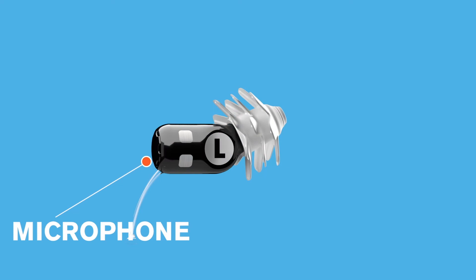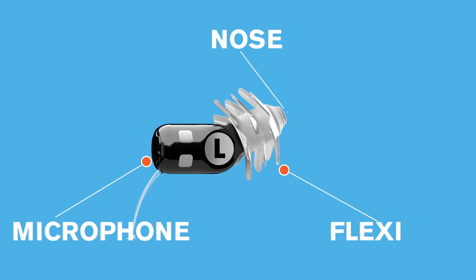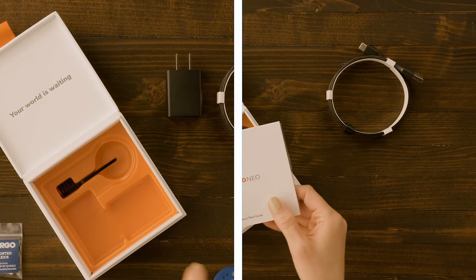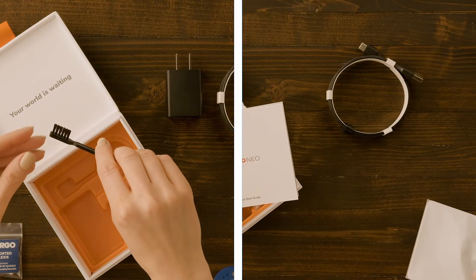If you see any wax on the microphone, flexi, the nose, contacts or body of the device, please brush it or wipe it off. The brush and cloth can be found in the cleaning accessories.